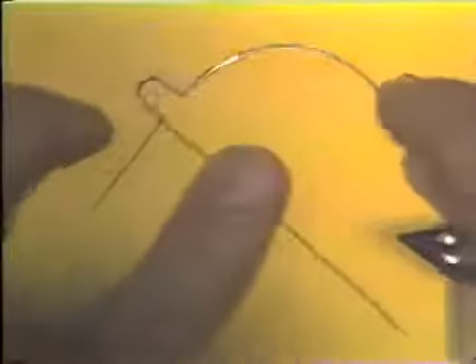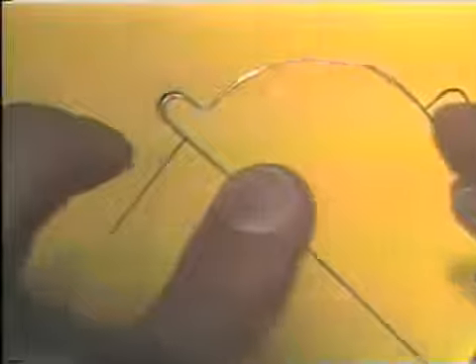You continue the bend, pushing the wire over the round beak of the plier a little at a time, and again trying it on the pattern.